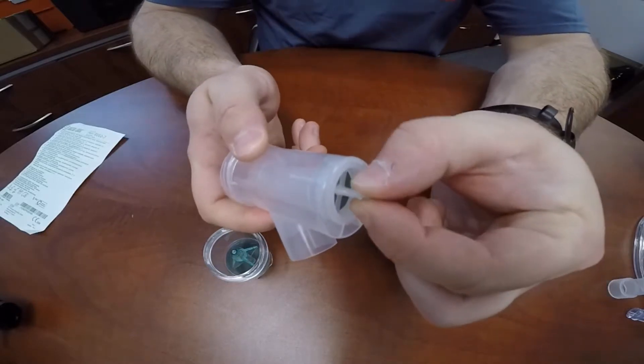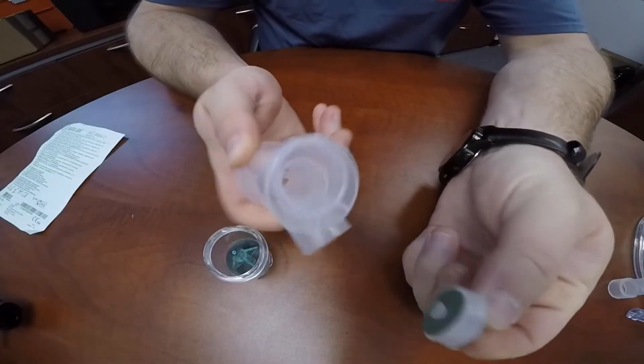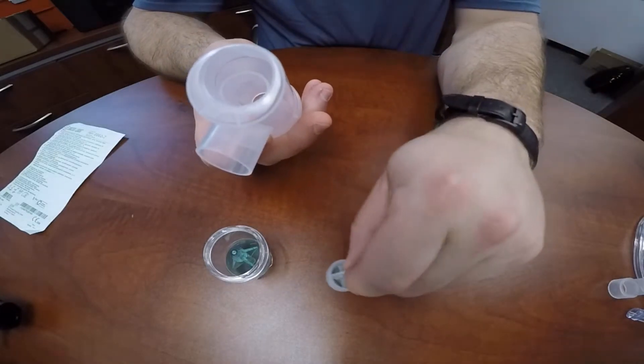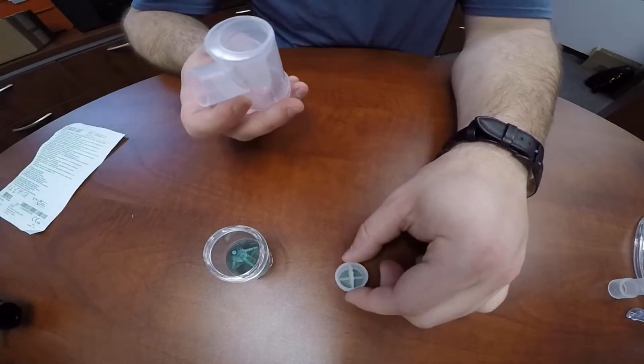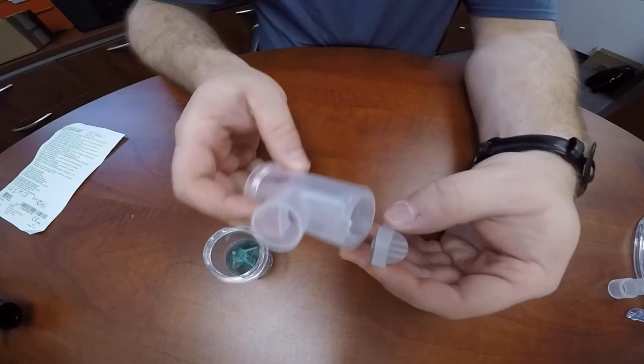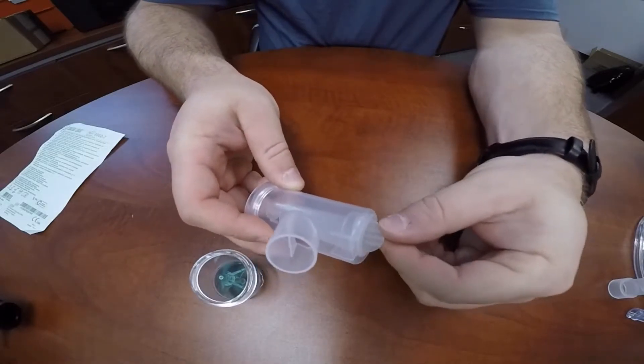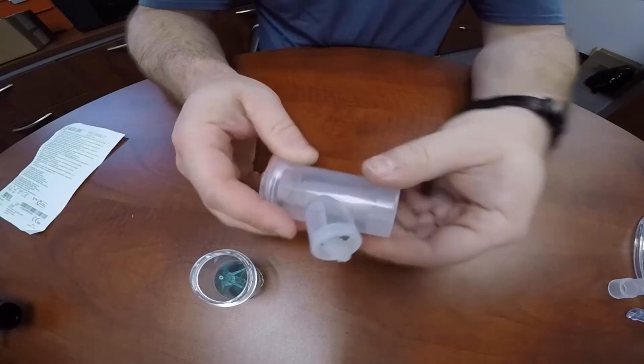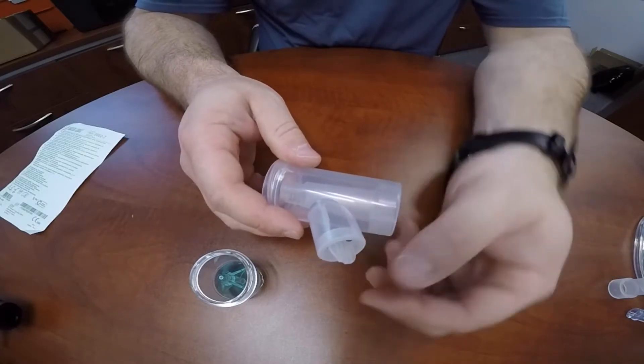And the rest of the device, at the top of the device, is the inhalation port, which can be removed and will need to be moved around for various configurations. It contains a small green rubber one-way valve on the bottom of the device.